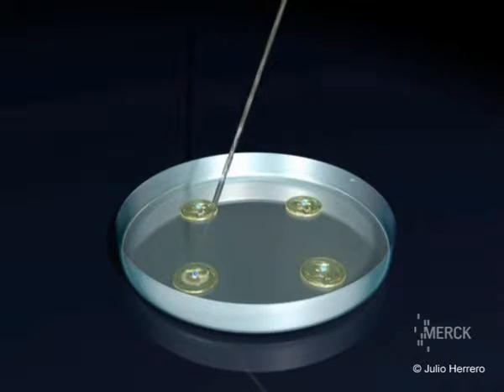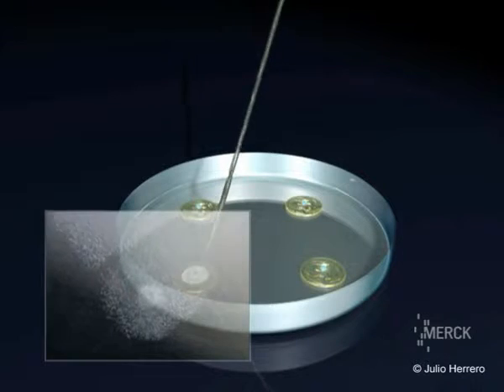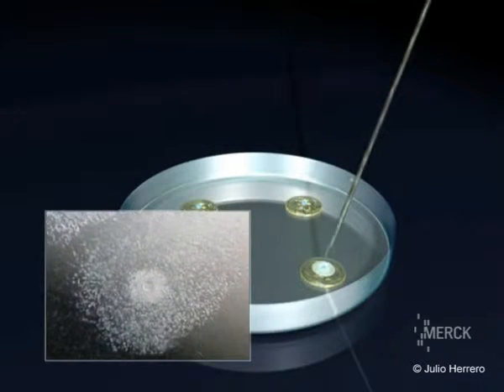In the conventional way, a micro-droplet of concentrated sperm is added to each of the wells containing the ova.